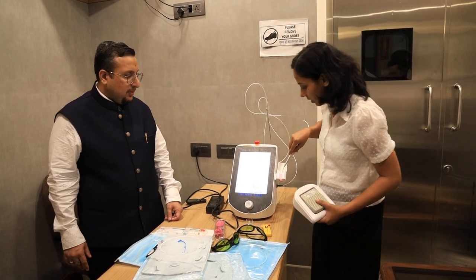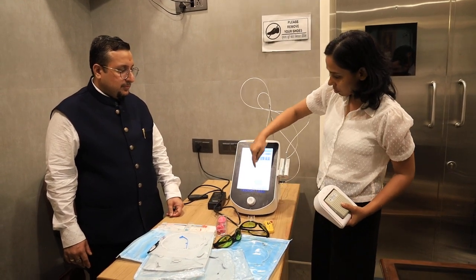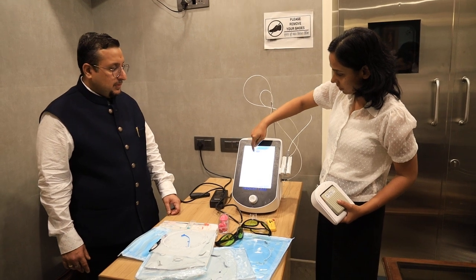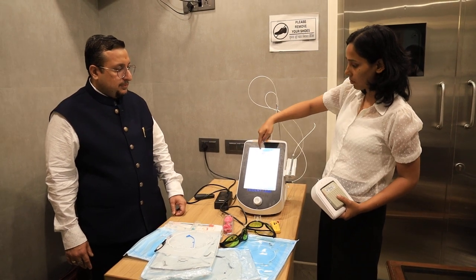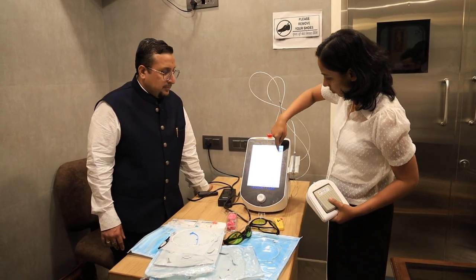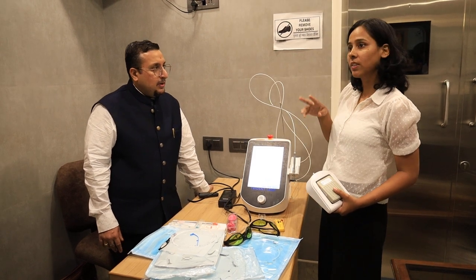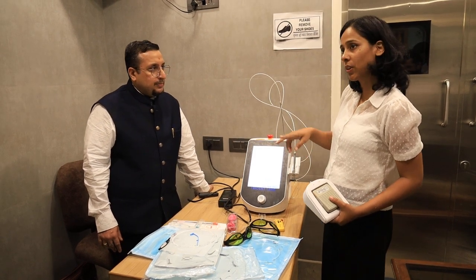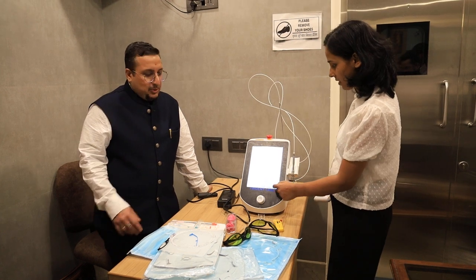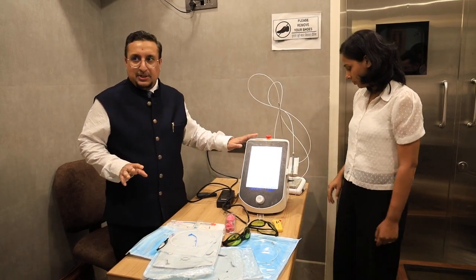Because this is a dual model, you can select your wavelength from here — whether you want to work on 1470, on 980, or on the combination where simultaneously you can deliver 1470 as well as 980. So this is a dual model. This is about the machine.